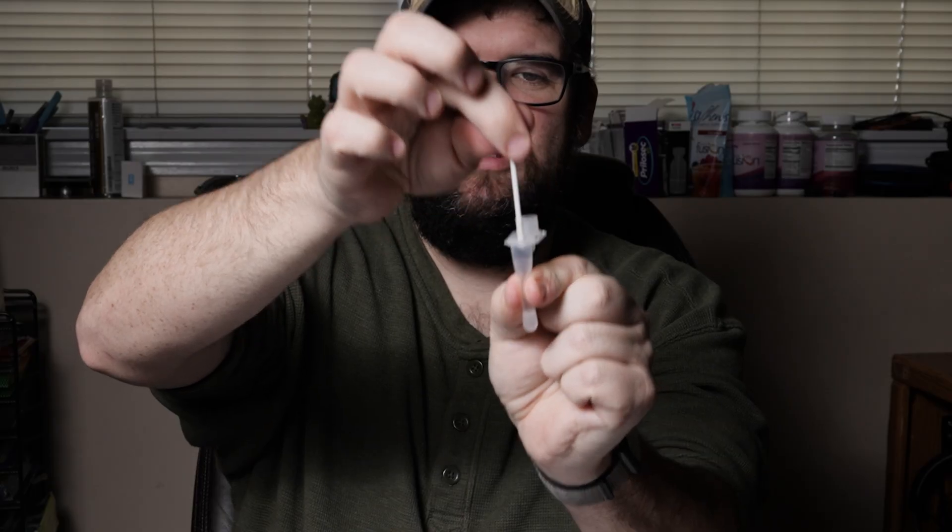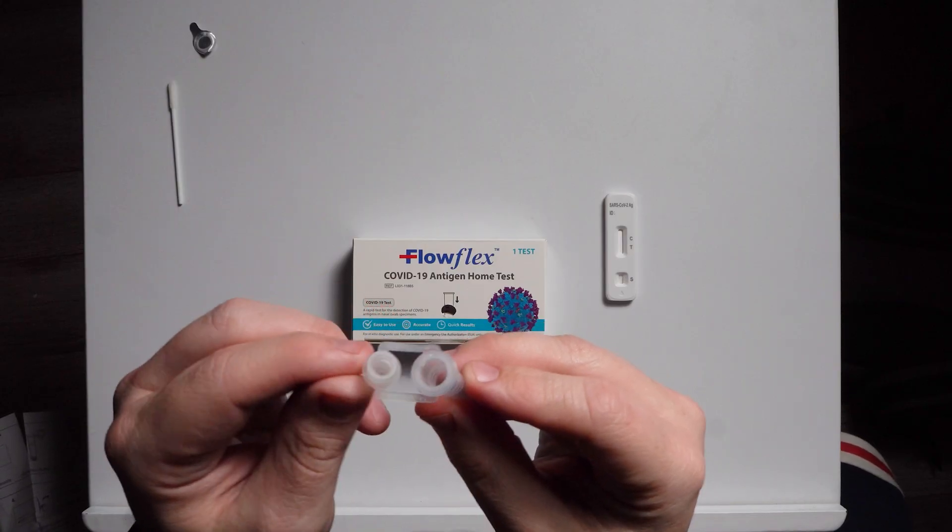Now they want to make sure you get every piece of the specimen. Squeeze, pull out — you're wringing it to make sure there's no liquid left. Then take this and close it.